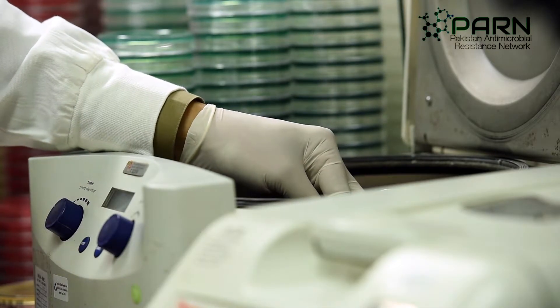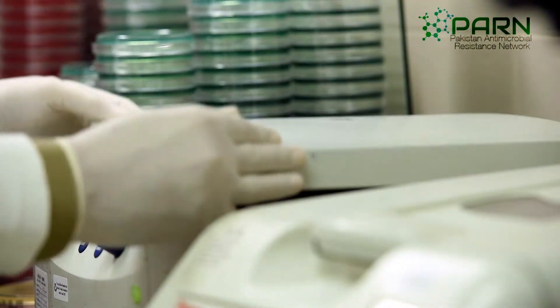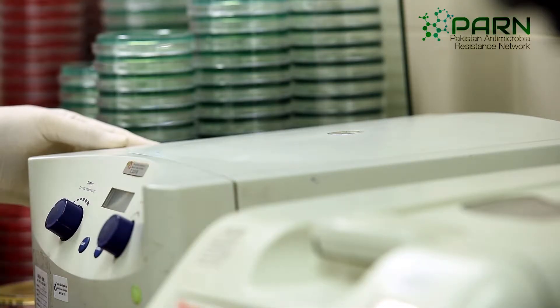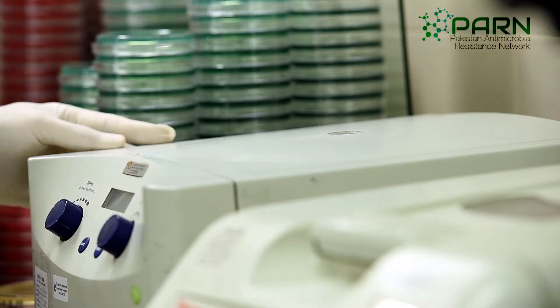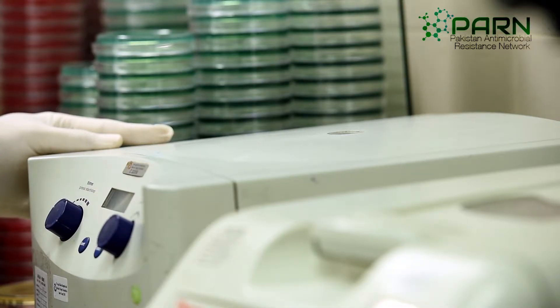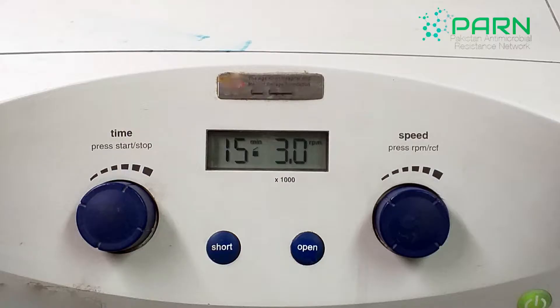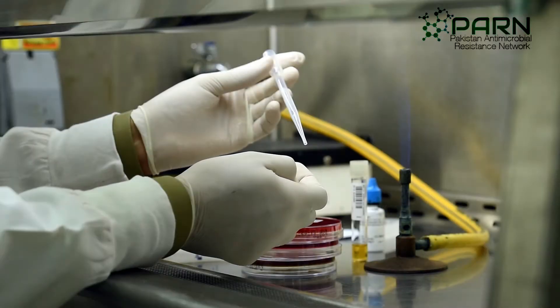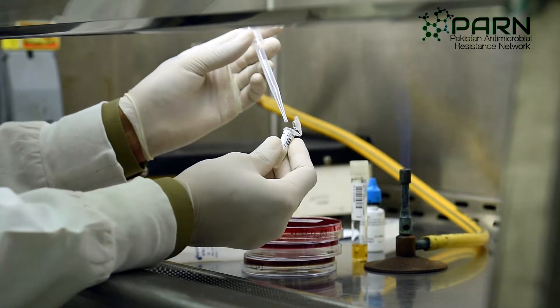Place 5 to 6 drops of specimen with 1 drop of 37% formalin into a cytospin specimen chamber. Spin at 2000 rpm for 8 minutes. If a cytospin is not available, centrifuge the specimen at 3000 rpm for 15 minutes. The sediment is then used for plating and smear preparation.